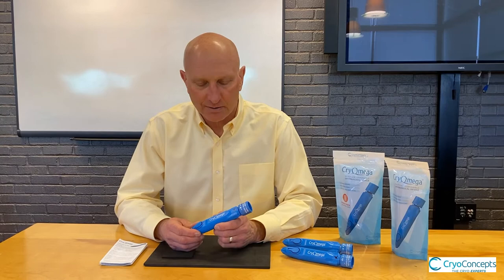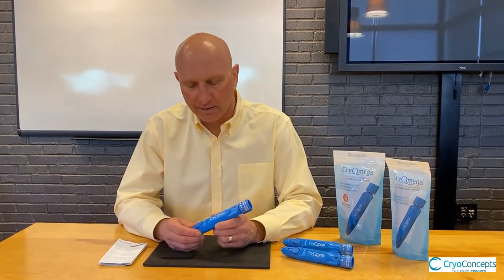Welcome. In this section, we'd like to review some of the indications that are treatable with the Cryomega cryosurgical device. Keeping in mind the device uses liquid nitrous oxide at minus 89 degrees centigrade, it is capable of addressing most benign topical lesions you will encounter. Common warts, plantar warts, SKs, AKs, and Lentigo are all addressable with the Cryomega device.